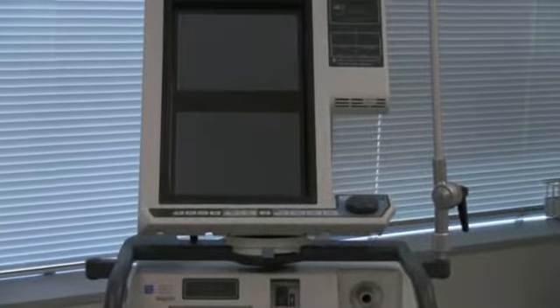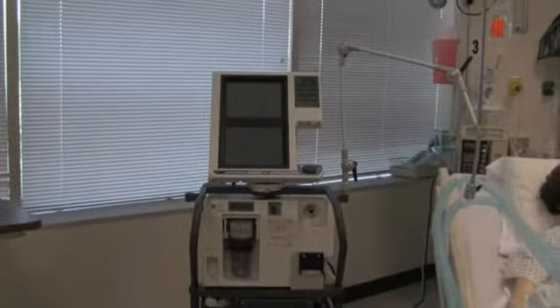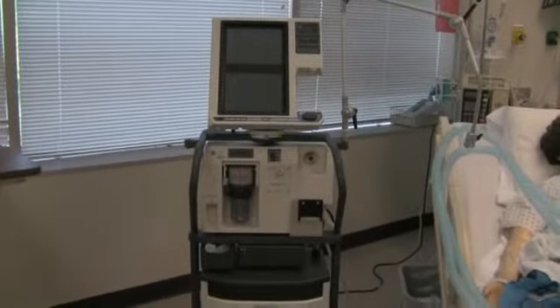Power switch is directly on the front, and the display on this machine is all touchscreen, which is pretty nice. So we will do a quick walk around and we'll look at all the features.